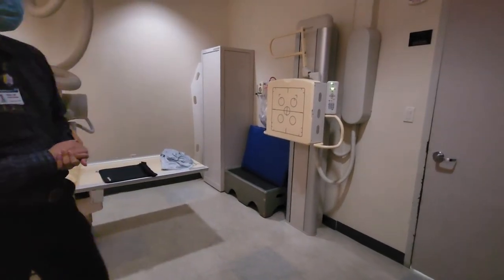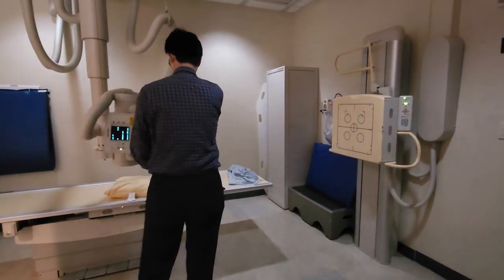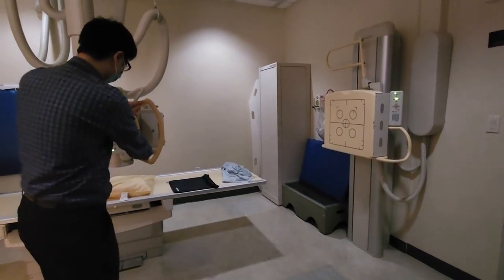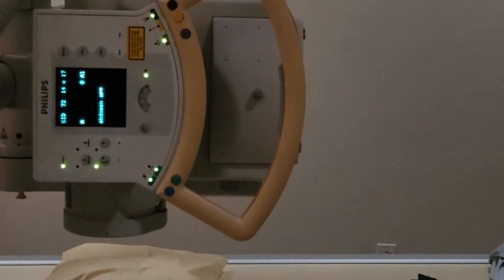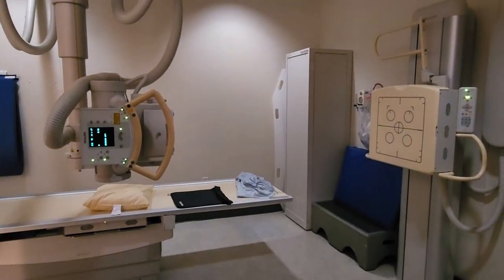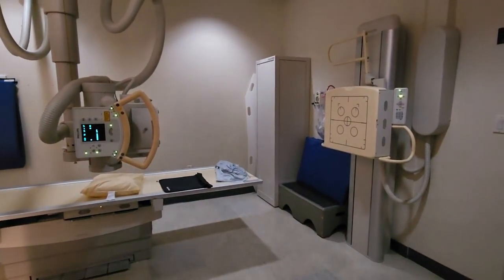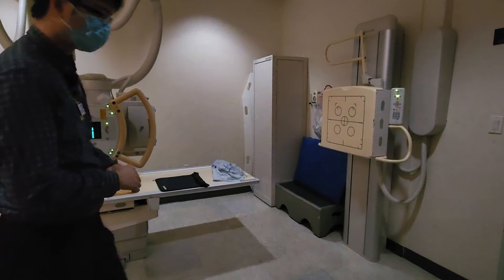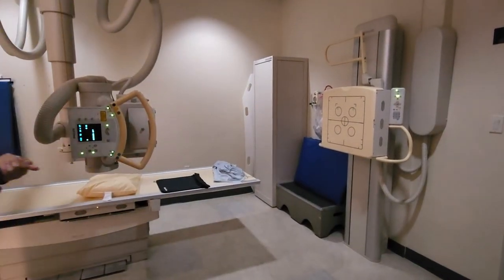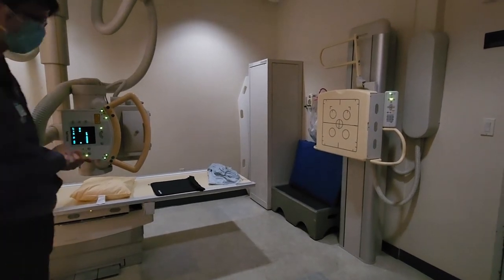First thing to know about chest x-rays: all chest x-rays are done at a 72-inch SID. All chest x-rays will be done with a 14 by 17 cassette, or in the case of the Bucky, a 14 by 17 collimation. The collimation should never go bigger than 14 by 17 — if you did 17 by 17, that is wrong. You can go smaller: 14 by 14 is fine. You just cannot go bigger.